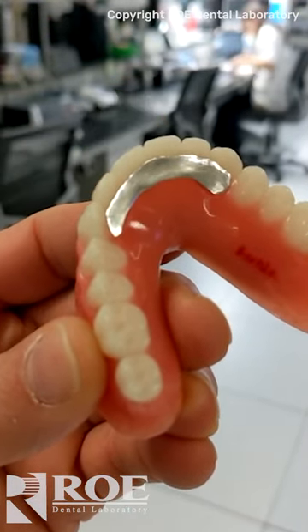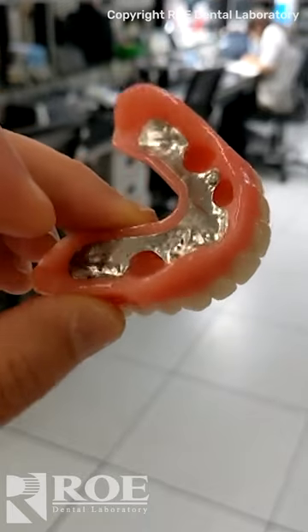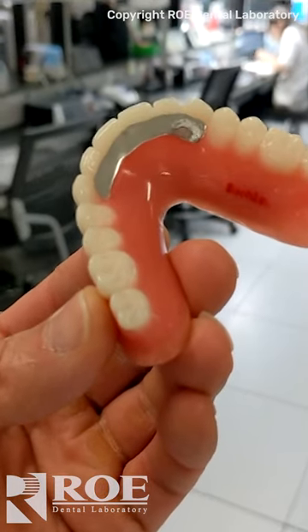When you put the striker plate on, a patient bites into metal, so it lasts a lot longer. It has a reinforced substructure and is also reinforced at the biting surface — that's what's called a striker plate.